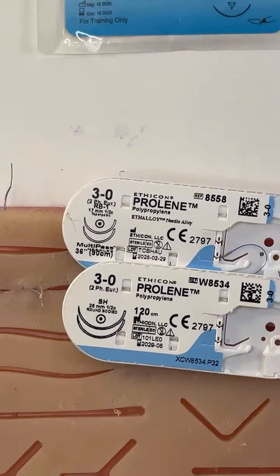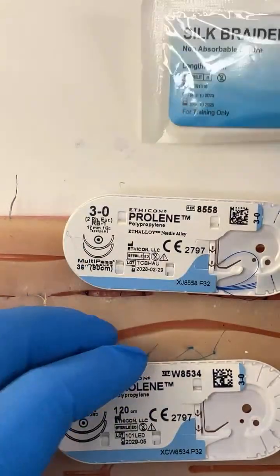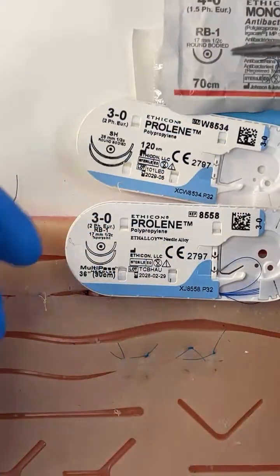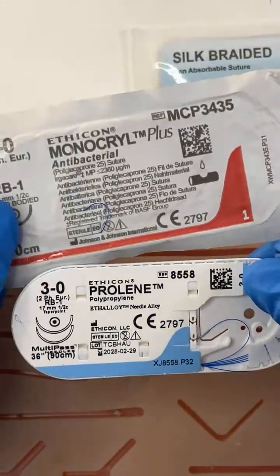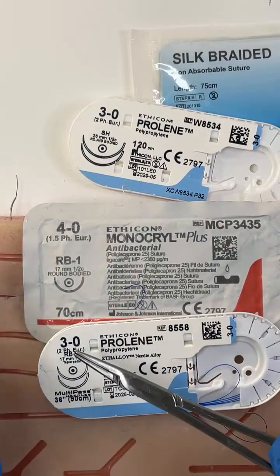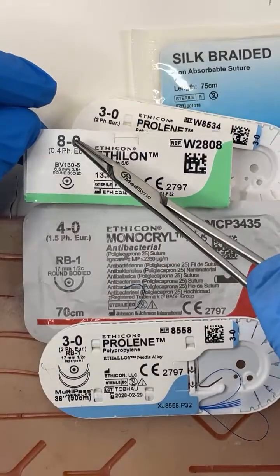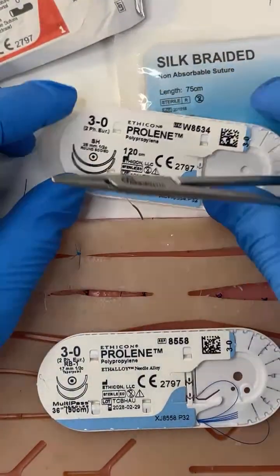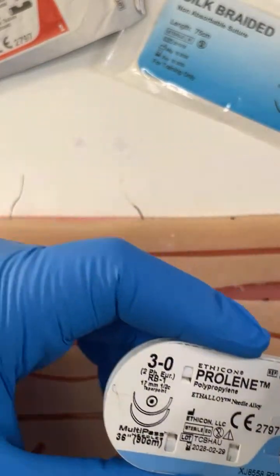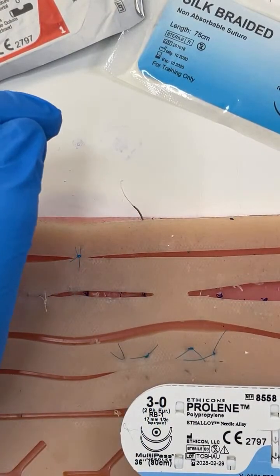So we've classified sutures into monofilament braided — monofilament Prolene, braided silk, monofilament Monocryl. We classify them again into dissolvable and non-dissolvable: dissolvable Monocryl, non-dissolvable Prolene, but both monofilament. We look at the number — 3-0 versus 4-0. More strength is required to break a lower-number suture than a higher one. Then additional factors: the needle type — round-bodied, taper point. For suturing skin: reverse cutting, cutting, or taper point. Dissolvable or non-dissolvable — the choice is yours. We're talking about suture selection to make your life easier for complex wounds.